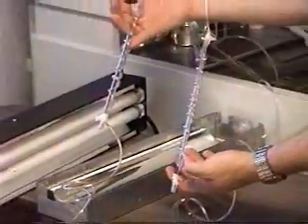This thing's a controlled unit, this is just a switch. Okay, standard blood bag. Hold those for a second. That's the spiral loops in and out.